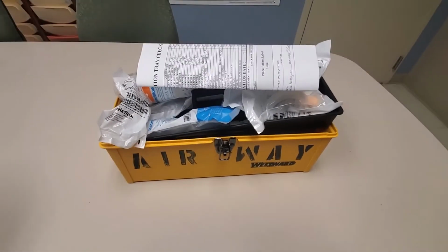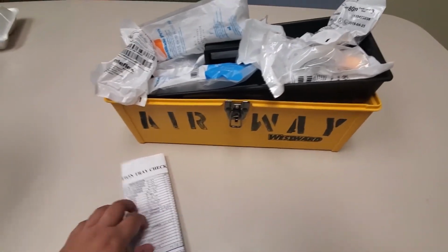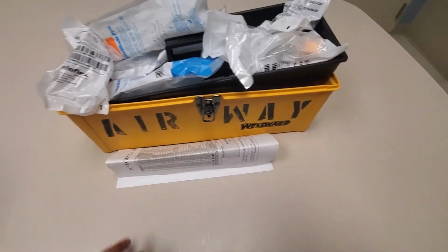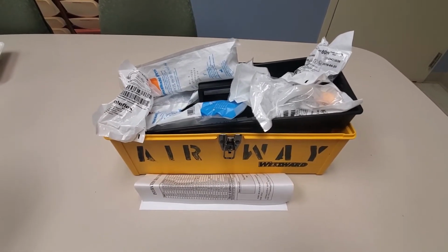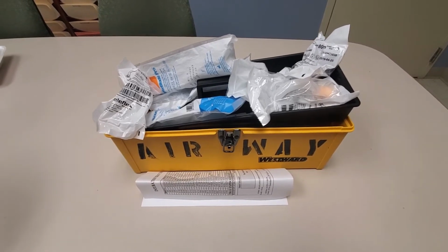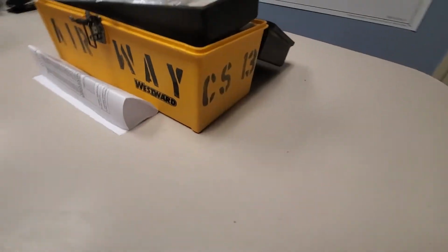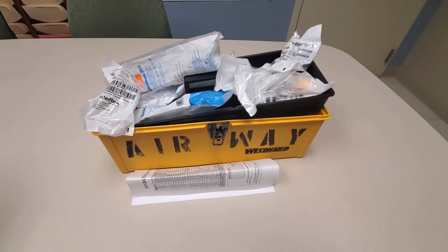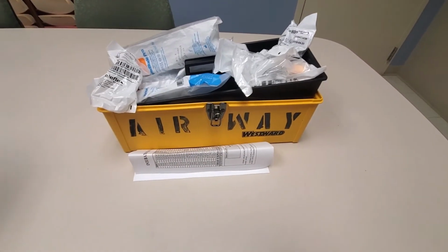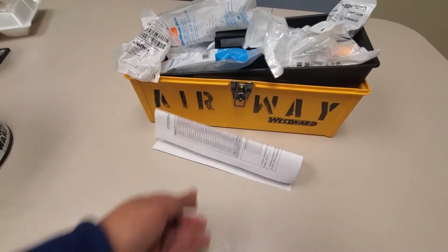If you're on night shift, CS is going to be closed because it closes at 4 p.m. So if it's outside of that period of time, then you would call your house supervisor to open up CS and then just drop this off and make sure to grab another one. If you ever need to know the number, it's here on the side. So this is box 13. So that is your Airway Box. That's everything that's in there. That's how to take it and what you need to do as far as when you use it.